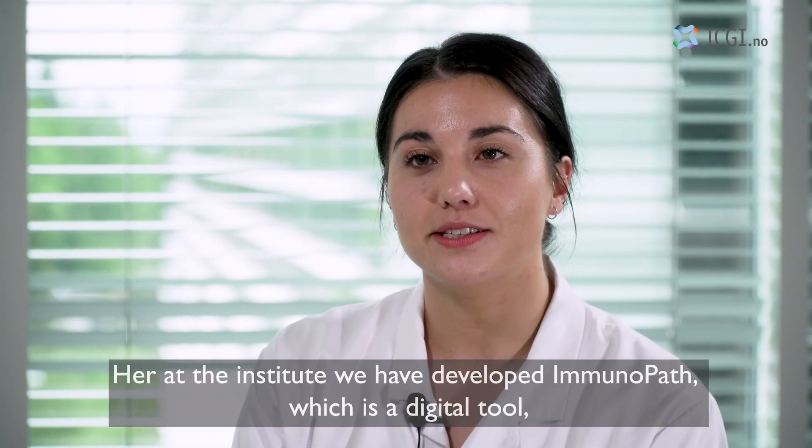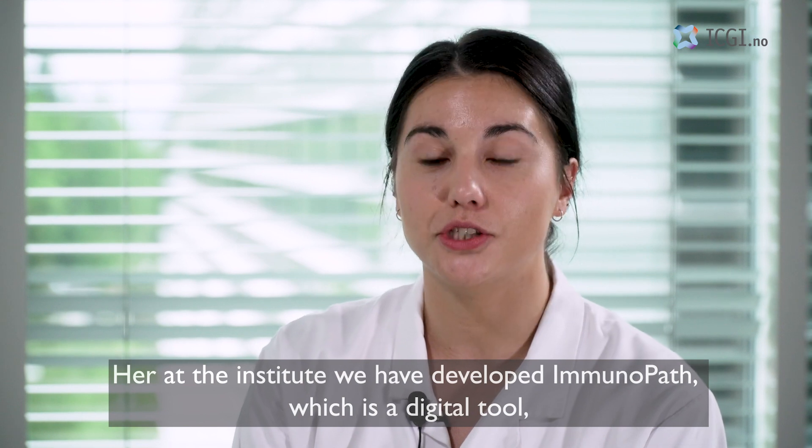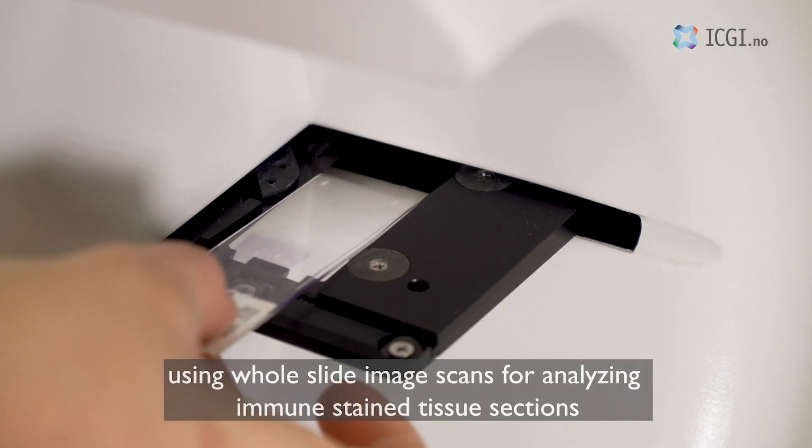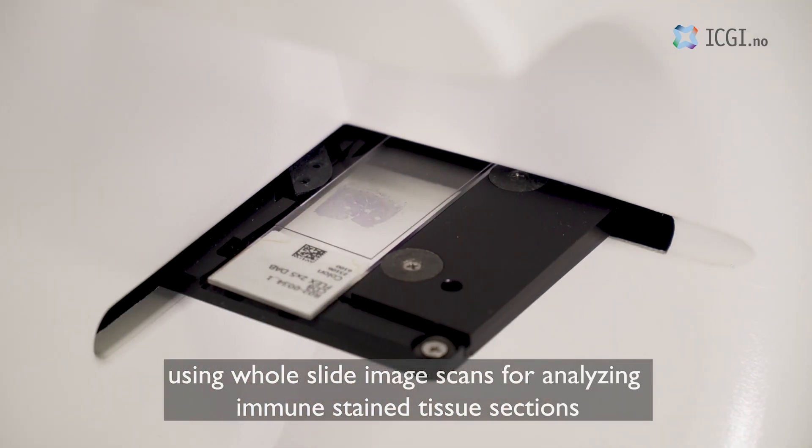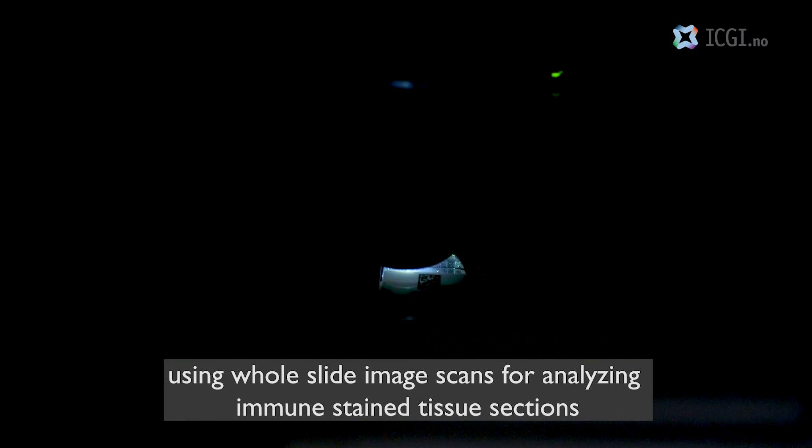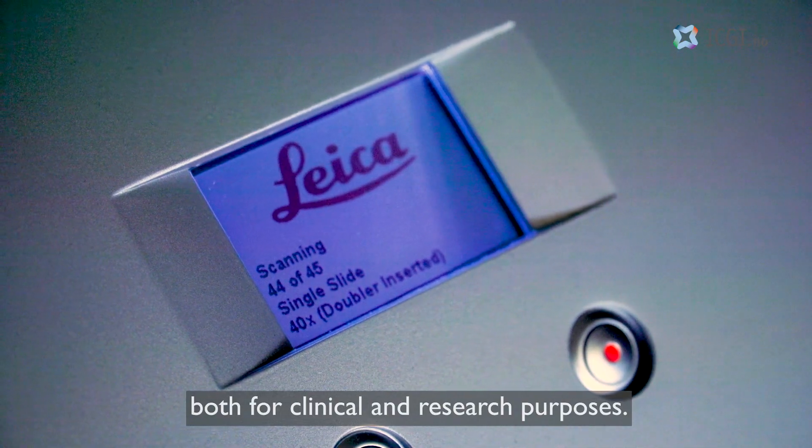Here at the Institute we have developed ImmunoPath which is a digital tool using whole slide image scans for analyzing immune stained tissue sections both for clinical and research purposes.